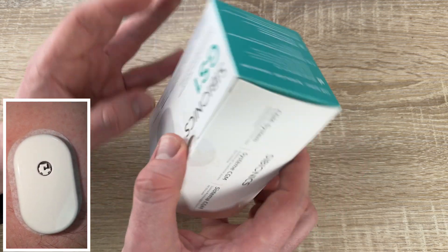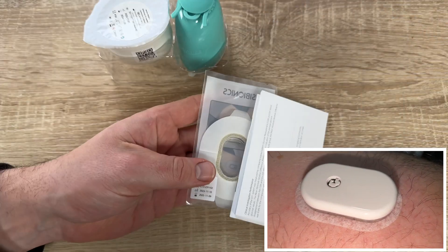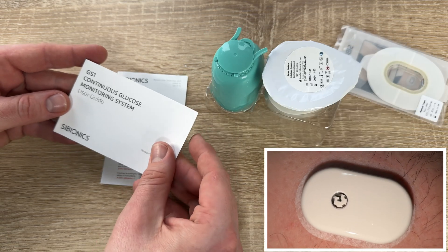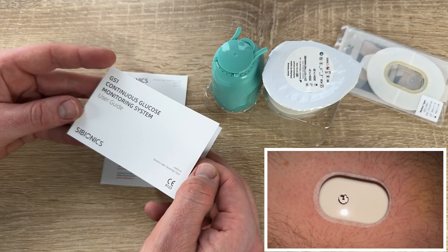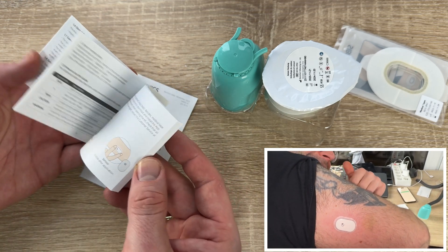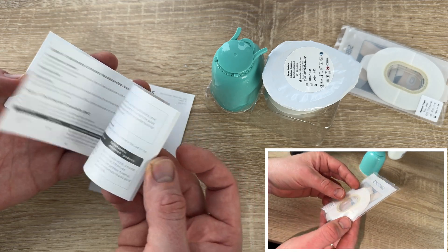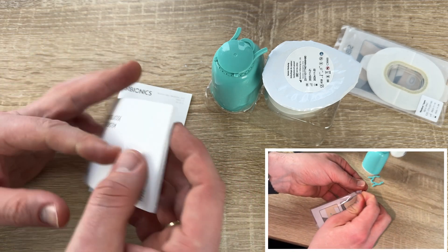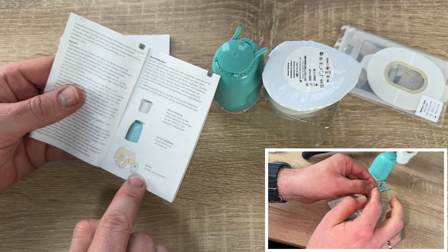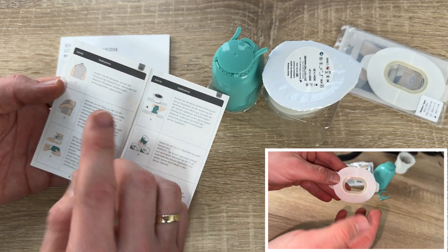The simple, powerful, user-friendly app empowers us to manage diabetes and lifestyle more scientifically and effectively — it measures, tracks, and analyzes data for more productive doctor appointments. It protects health around the clock with alerts for hyperglycemia and hypoglycemia, so we know whenever glucose is too high or too low to take timely action.